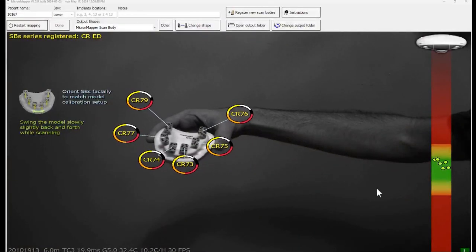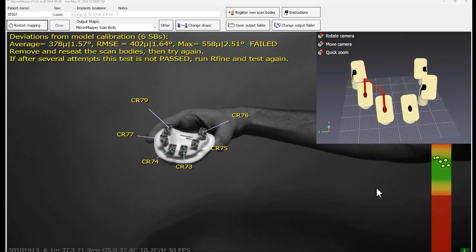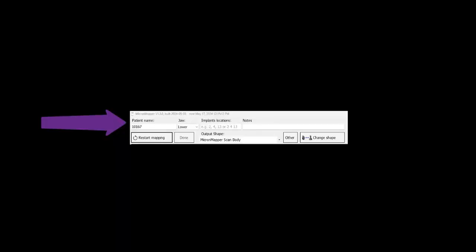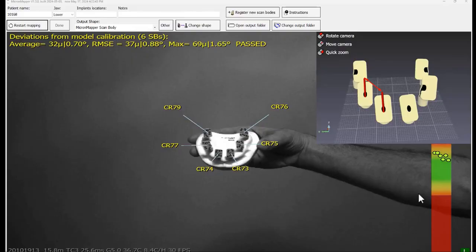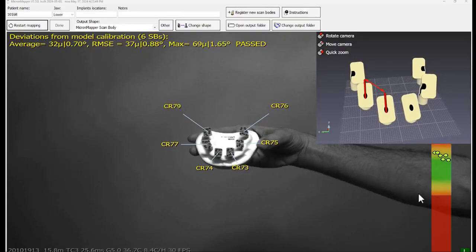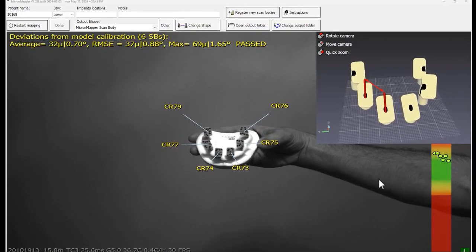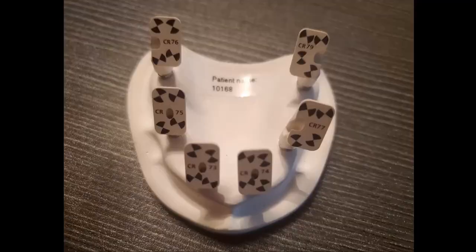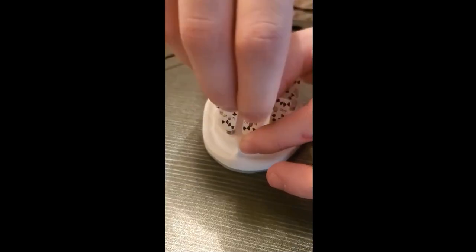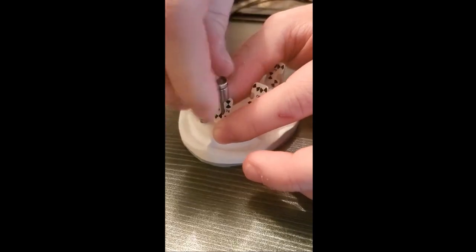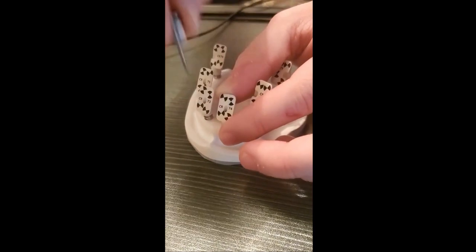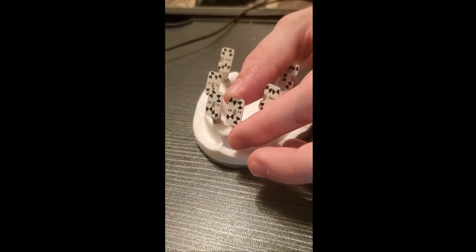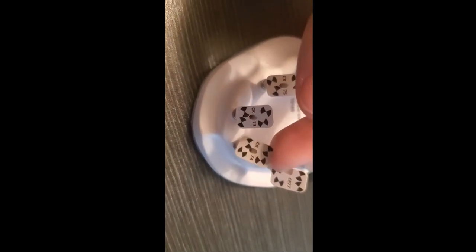If the accuracy check failed, follow these steps. Double check the number of the stone model entered. Make sure it is the same one as on the model. Verify that the scan bodies IDs displayed on the screen are matching the physical scan bodies IDs. Tighten all the scan bodies again. If any of the scan bodies is loose and is moving while moving for calibration, it will fail the test.